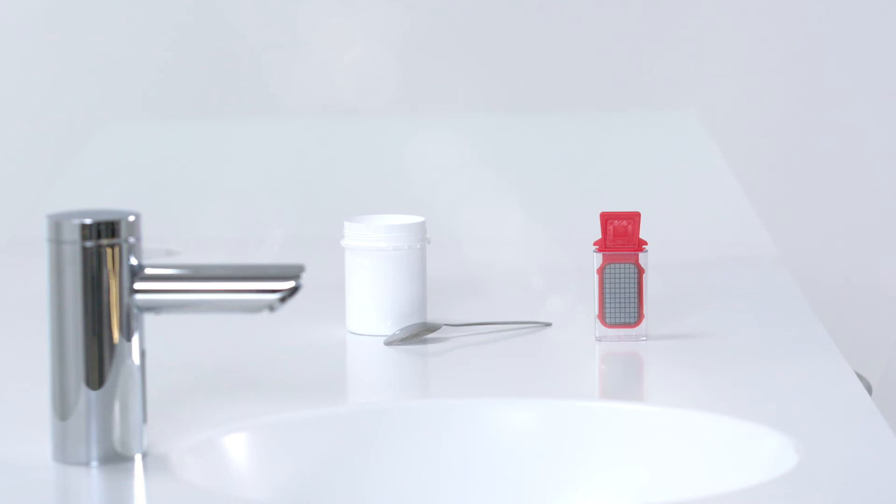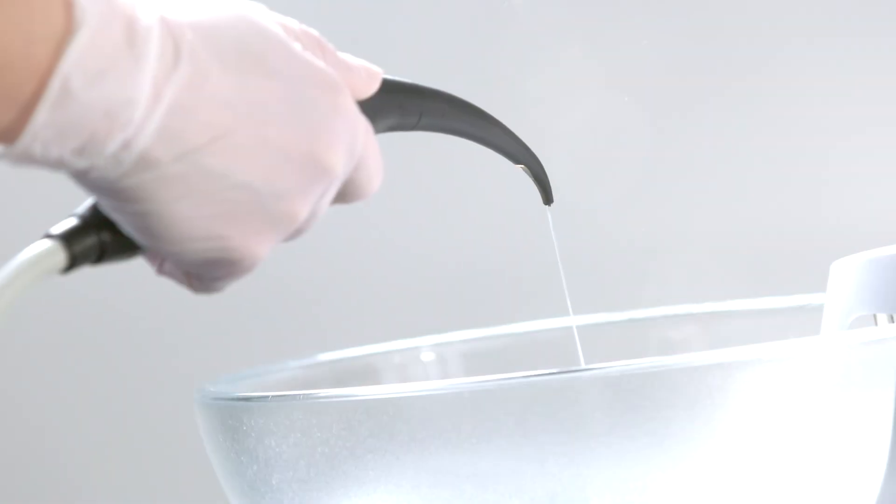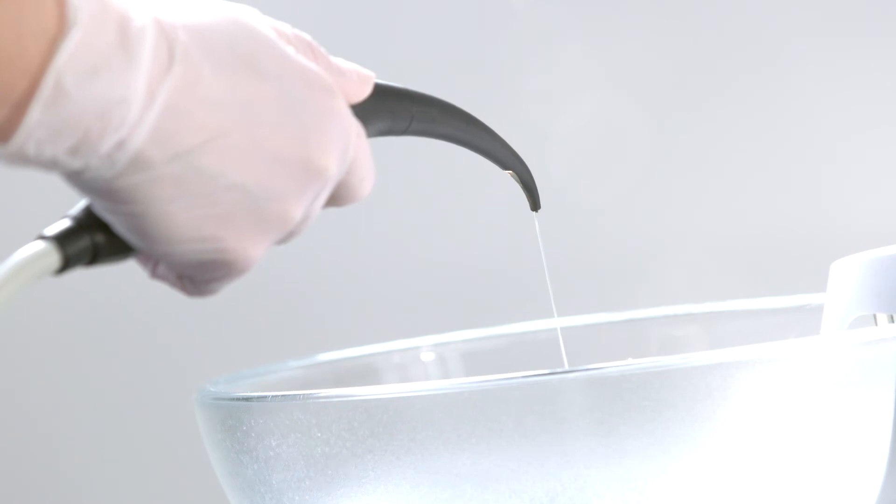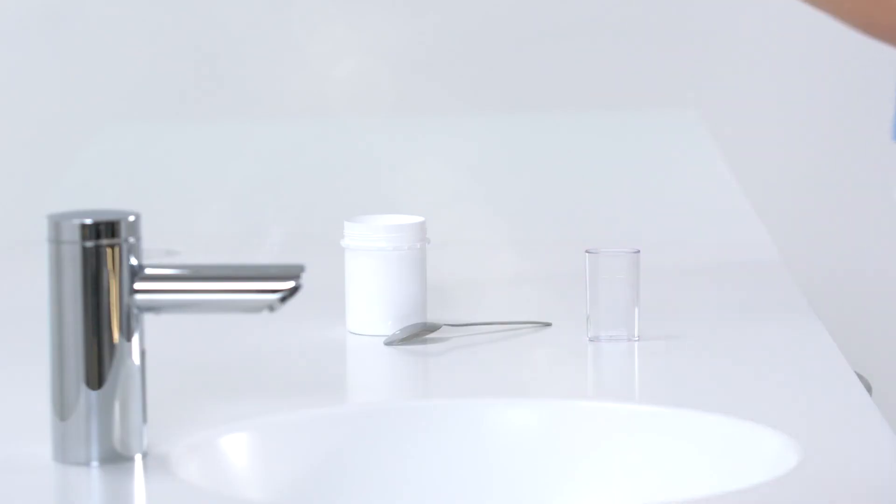Perform microbiological checks of the water from your treatment center at regular intervals. Allow water to run out of the syringe into the cuspidor for about one minute. Use the syringe to fill the test container with cold water to its upper fill line.